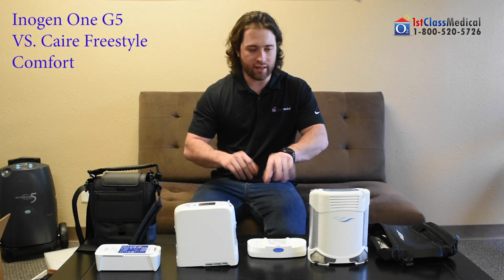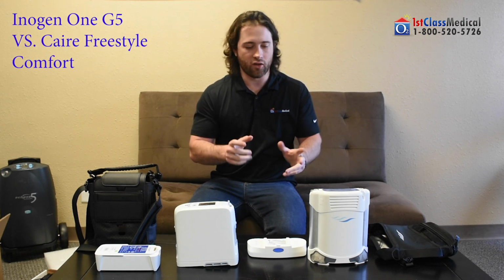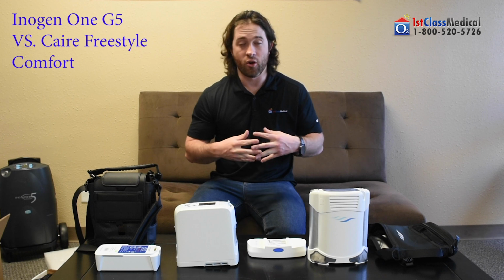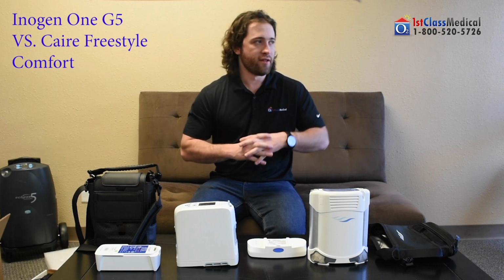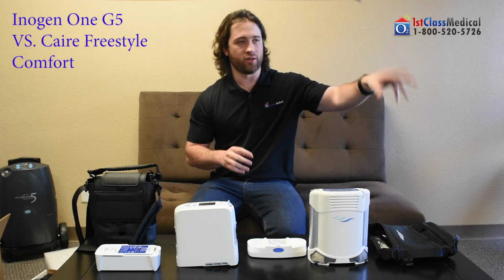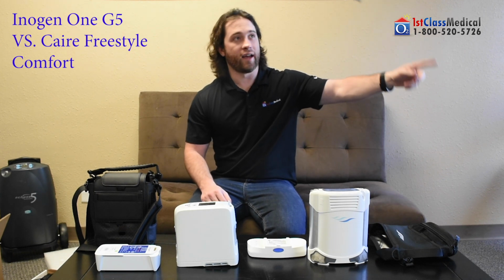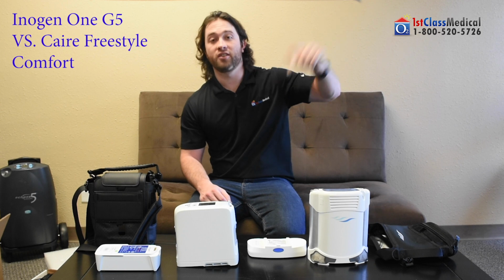Servicing for the two units is going to be basically identical, for any kind of servicing that you ever need. Once again, we're one of the only companies out there that has our own in-house repair centers. So versus you having to ship it to a company that needs to ship it to the manufacturer to have it repaired, to have that manufacturer ship it back to them, to then ship it to you.